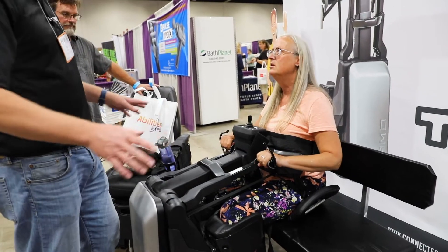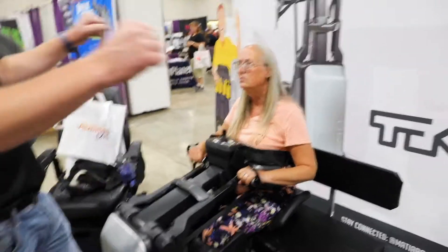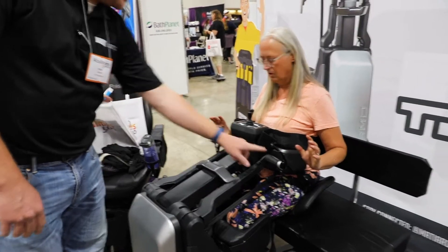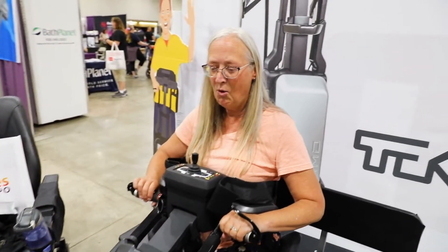Because instead of using your upper body — now your physical therapist might tell you they want you in that one, because they want you still to do some of that work, keep some muscles, force yourself to do it. But in this one, keep that hand where it was and then this side, just go ahead and squeeze that and it's gonna lift it up. Oh, holy crap.